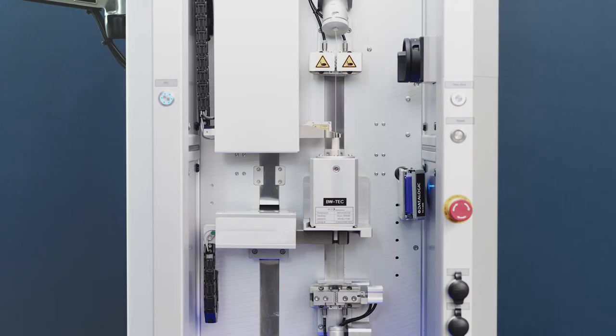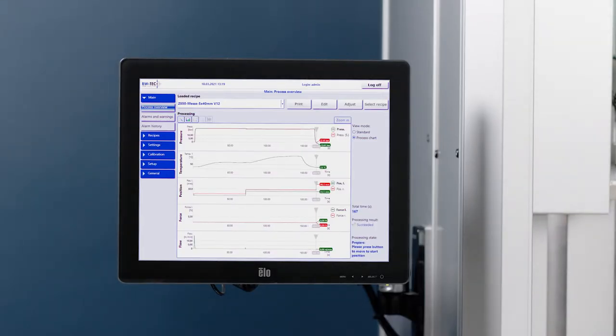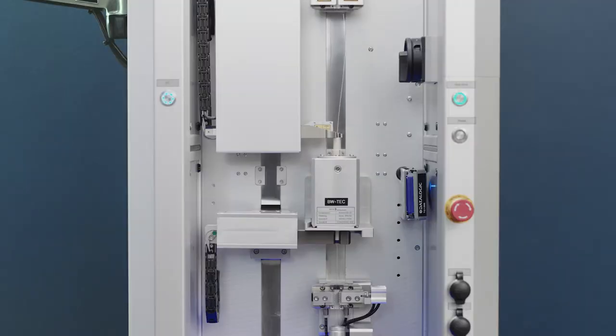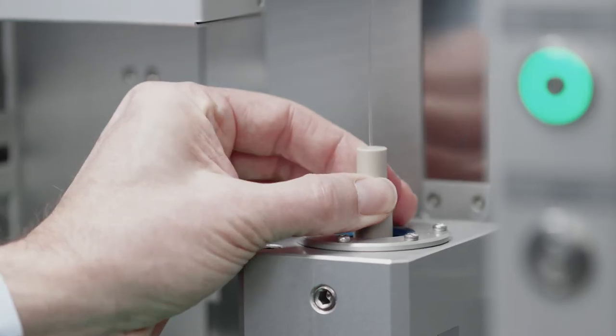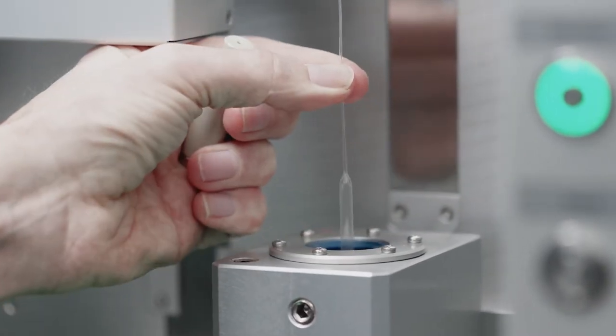The recipes can have multiple steps to produce the balloon according to your balloon requirements. After the forming of the balloon, there is the possibility to stabilize the balloon on the machine.